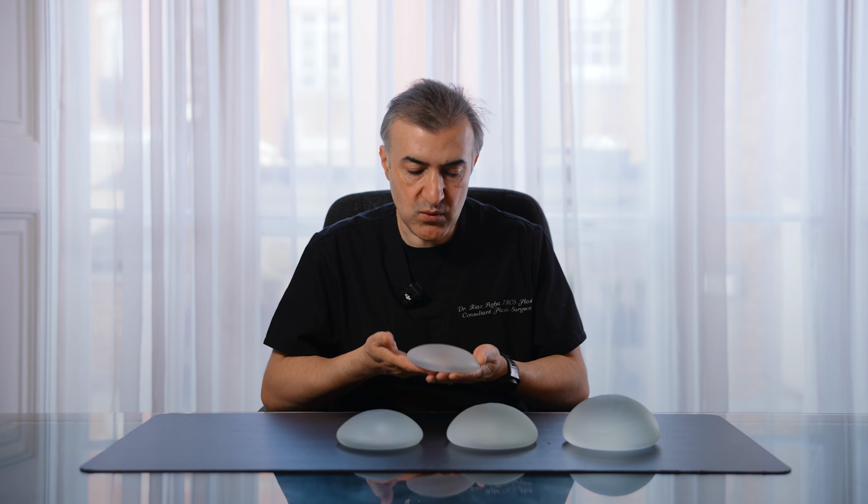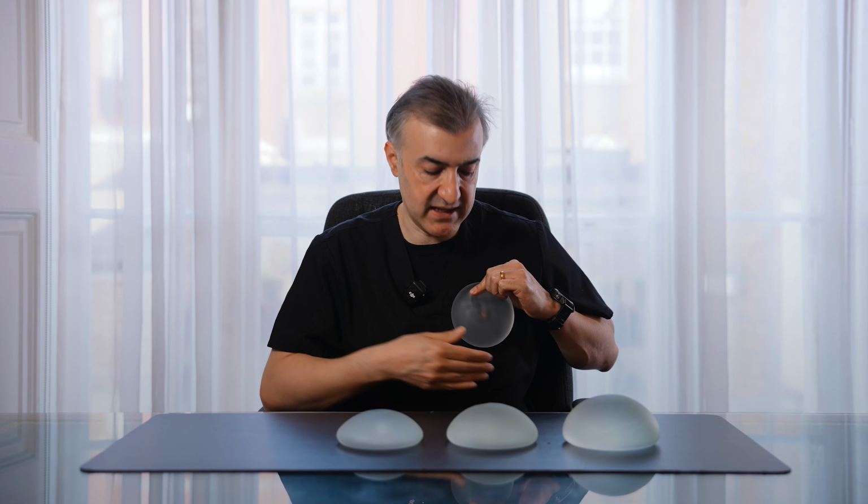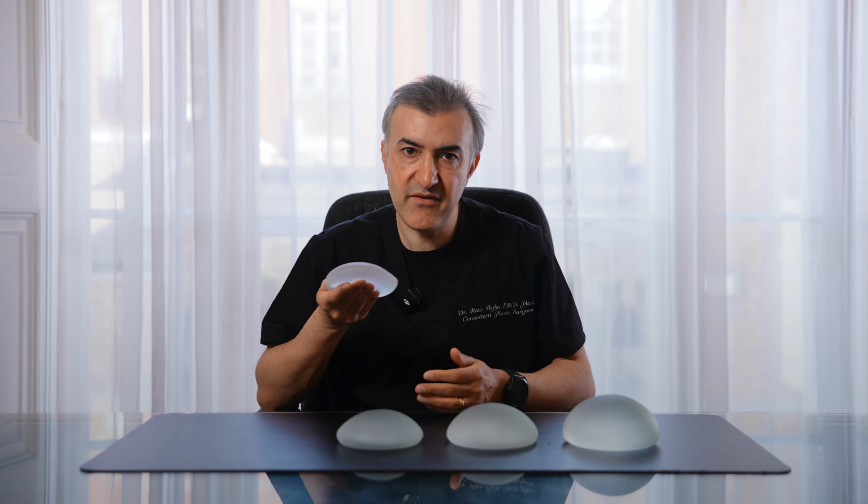The advantage of it is that it's quite light. Less volume means it's less weight, and that means that you're not likely to get sagging or ptosis over time, where the envelope can stretch down and you're going to need an uplift in the future when you do a further breast augmentation in, say, 12 or 15 years. So that's the advantage. They're very light.